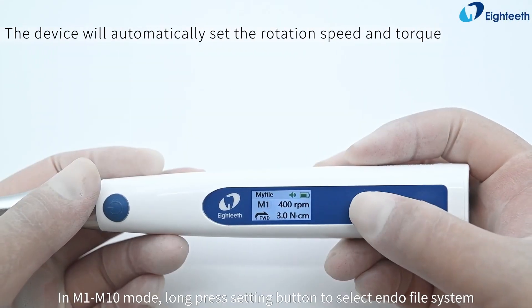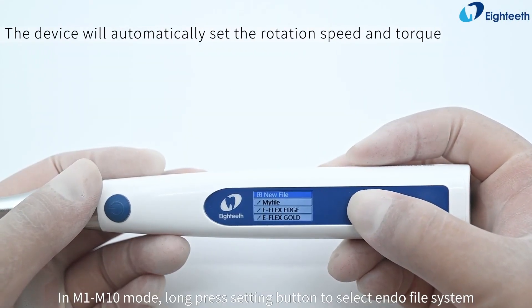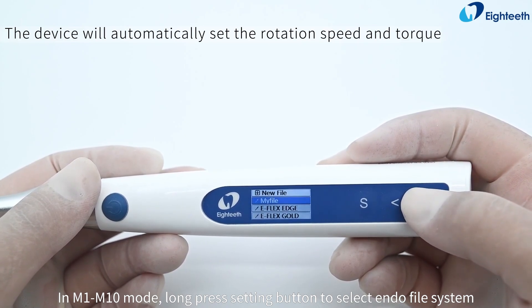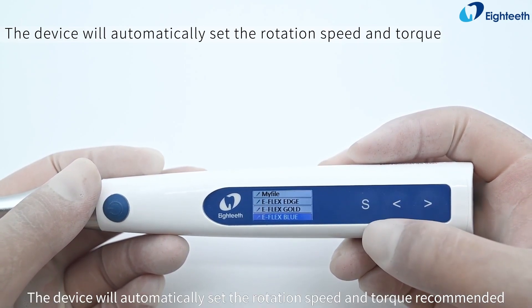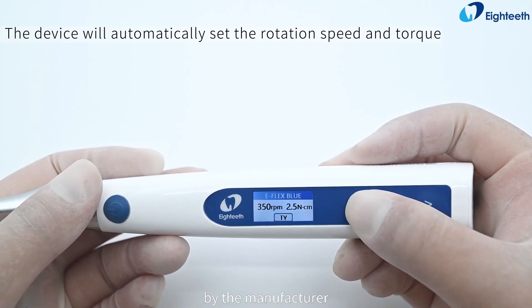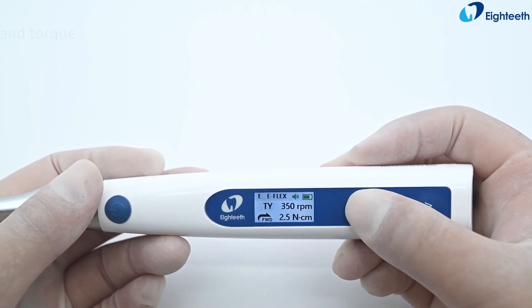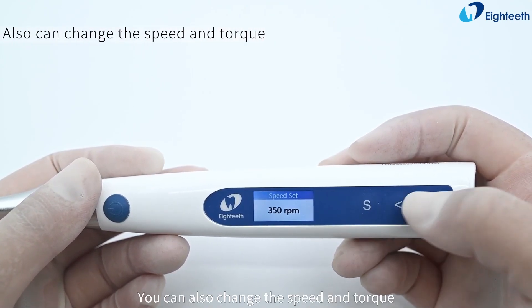In M1 to M10 mode, long press the setting button to select the endo file system. The device will automatically set the rotation speed and torque recommended by the manufacturer. You can also manually change the speed and torque.